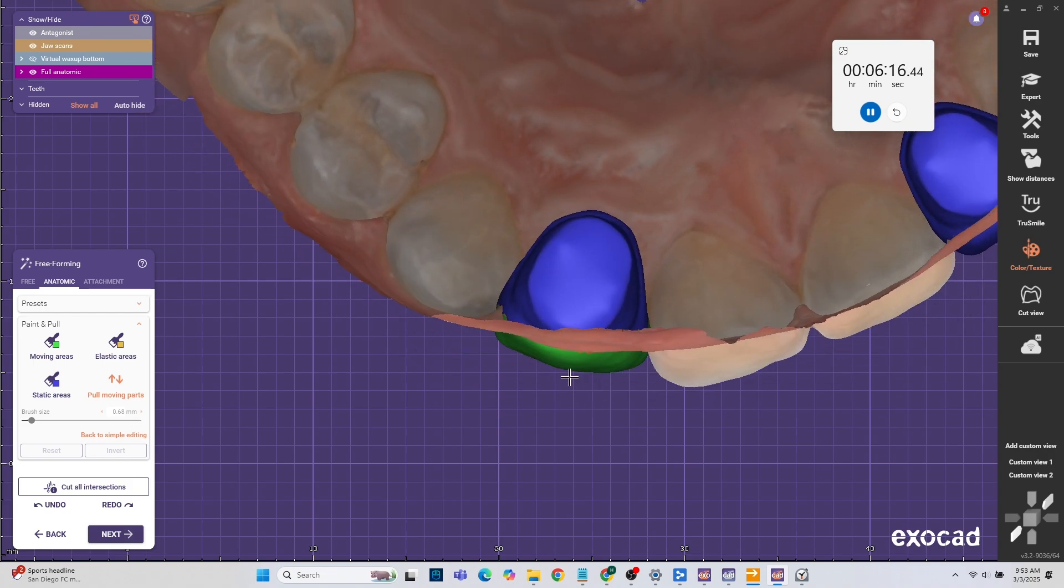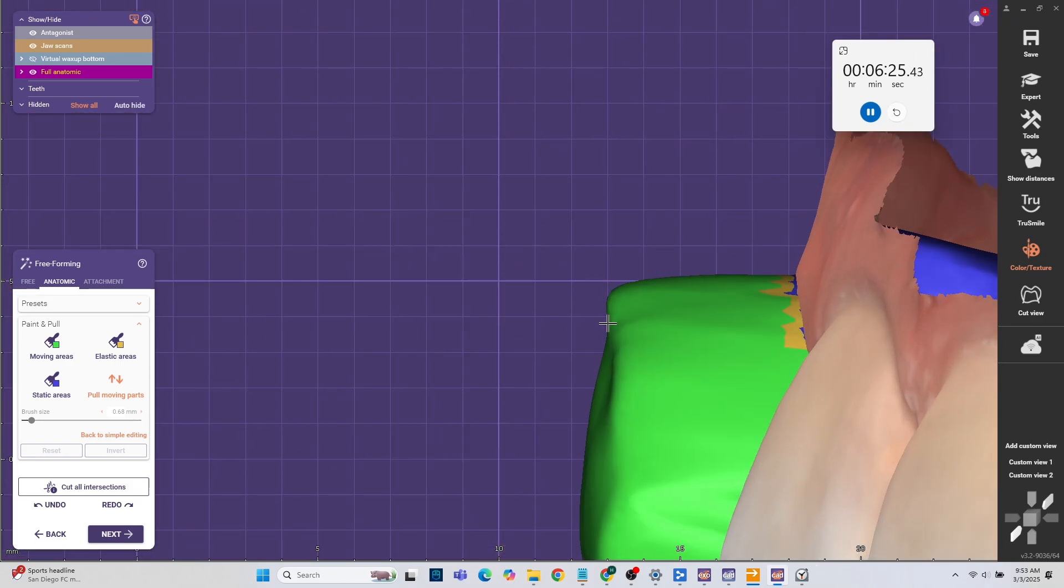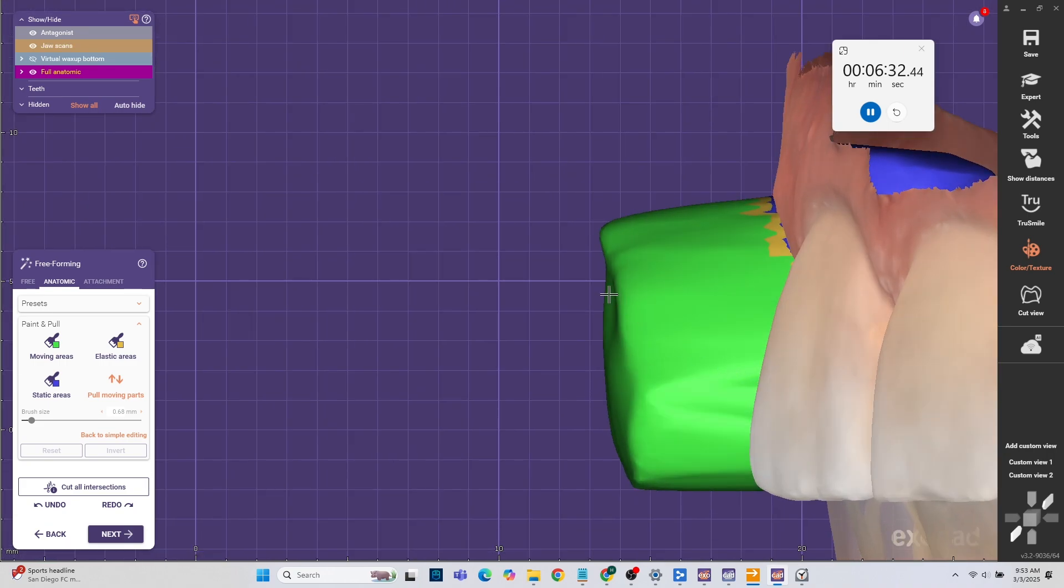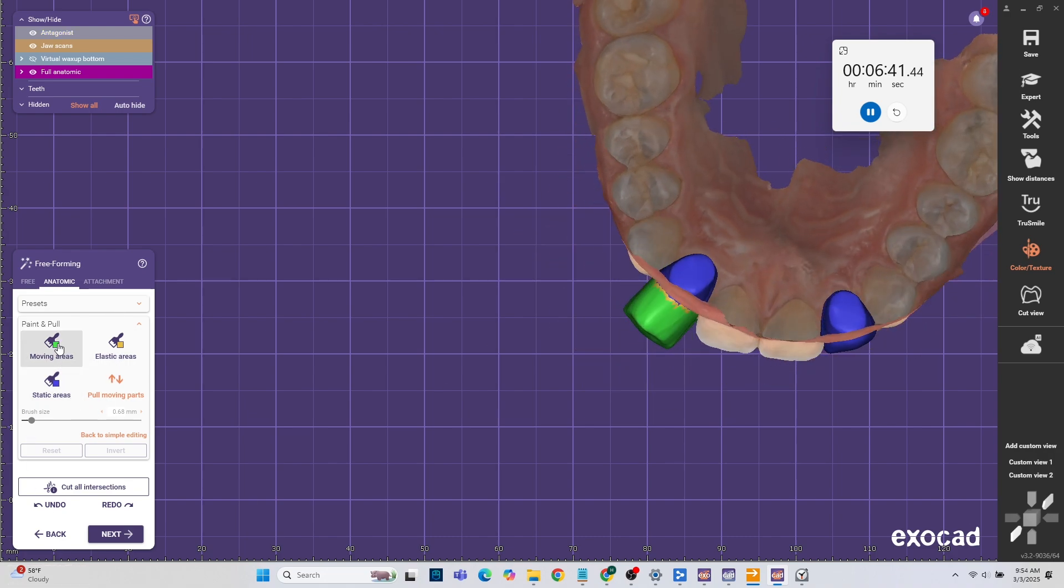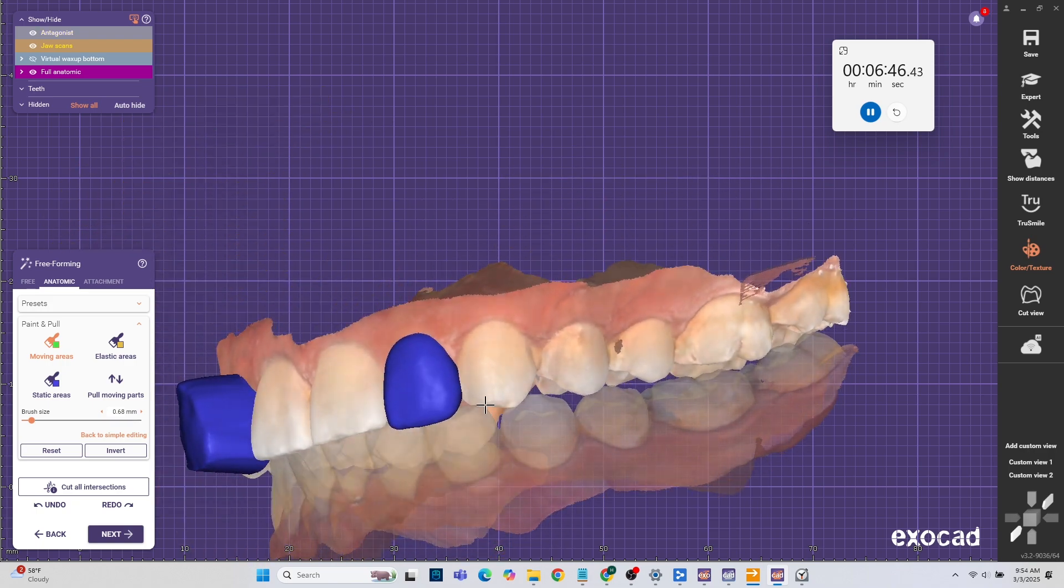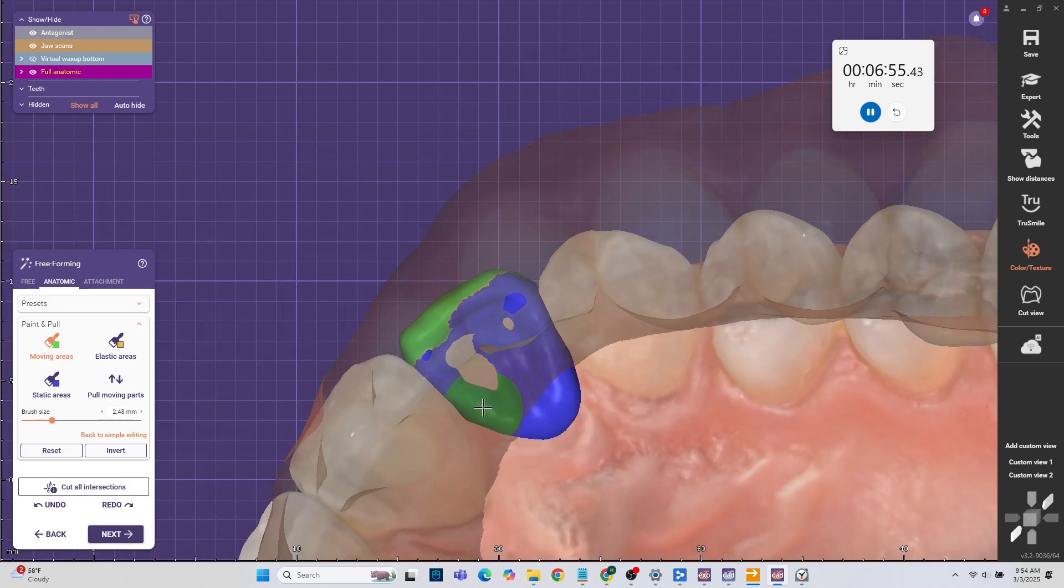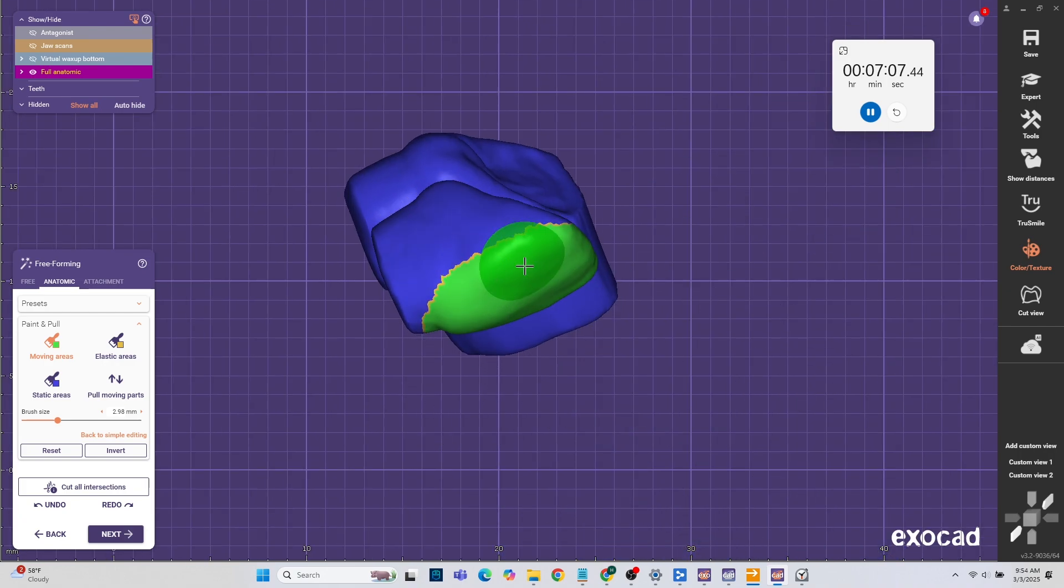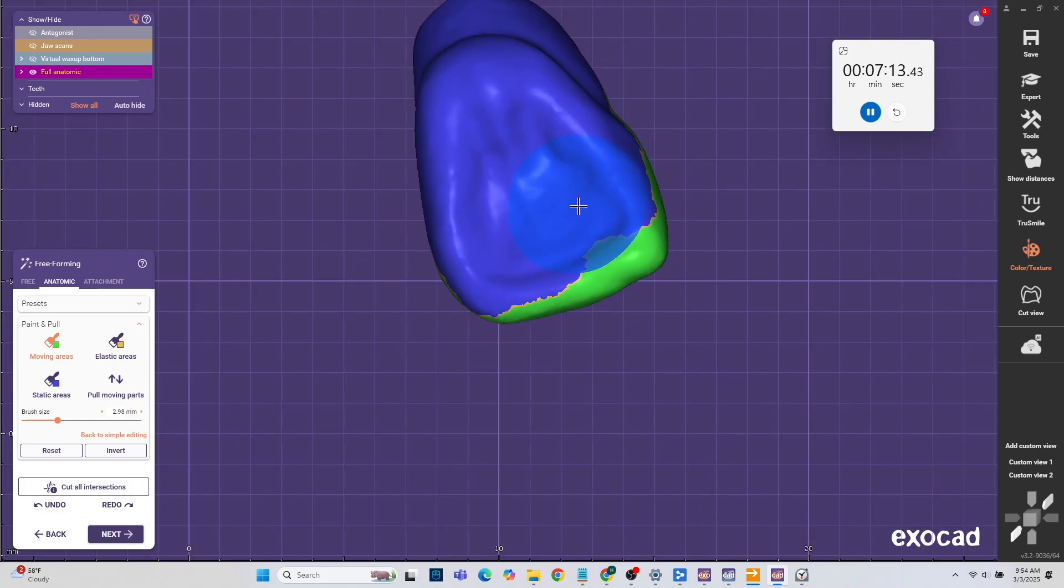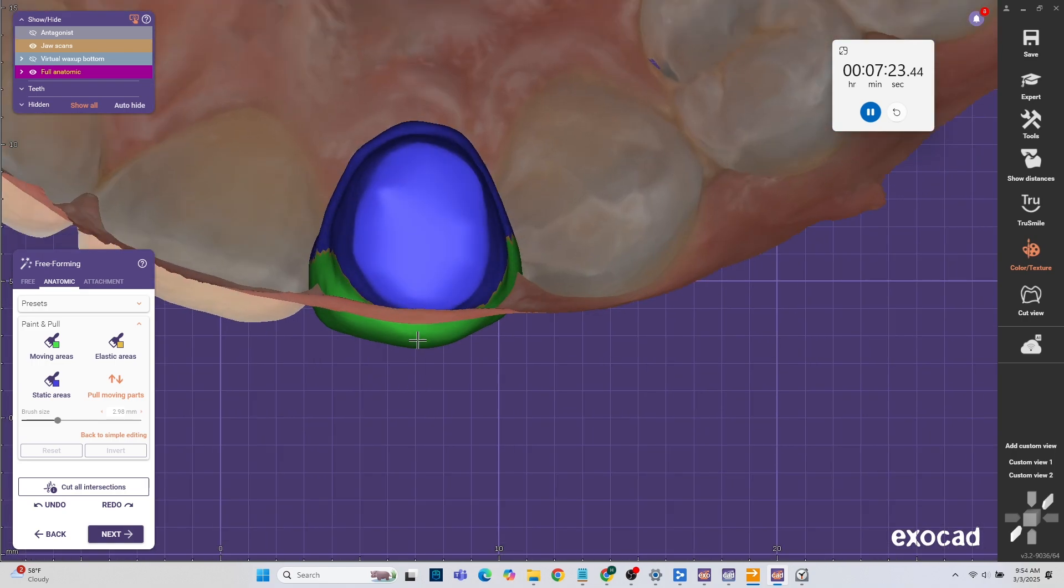Next I'm going to pull the actual tooth and pull it out quite a bit. I want to be perpendicular to the tooth. You don't really want to be angled. Just so it can be a little bit more precise. Do the same thing to the other tooth. I'm going to pull it out.